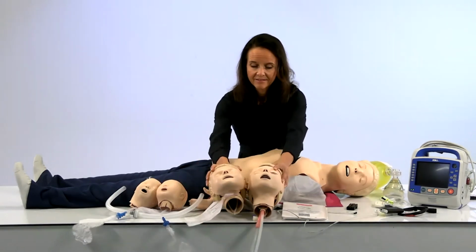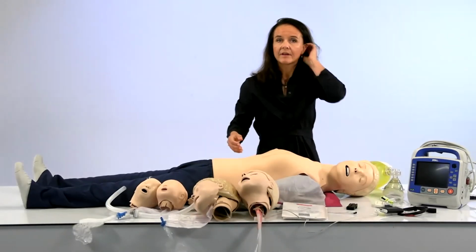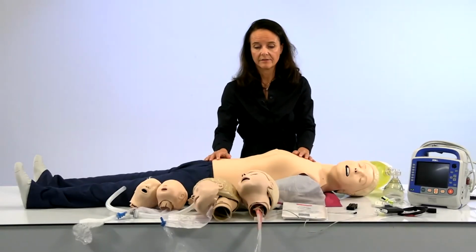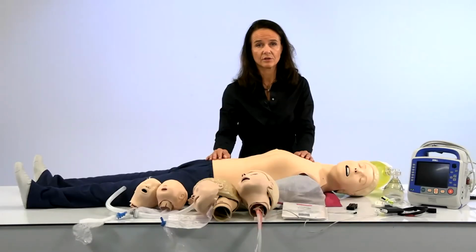So since you have Resusci Junior right in front of you looking through the questions, can the Resusci Junior HP-CPR airway head be added to any Resusci Junior? No, like I just said, the Resusci Junior was greatly improved in 2018. So we made a completely new compression system for that mannequin. And we also improved the lung and the trachea system. So the new lung system that we have here is not compatible with older Resusci Junior mannequins due to the new compression system that we have.